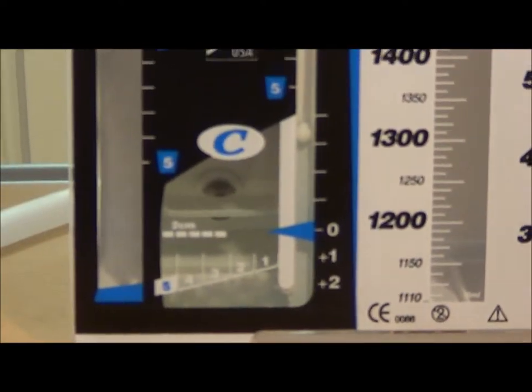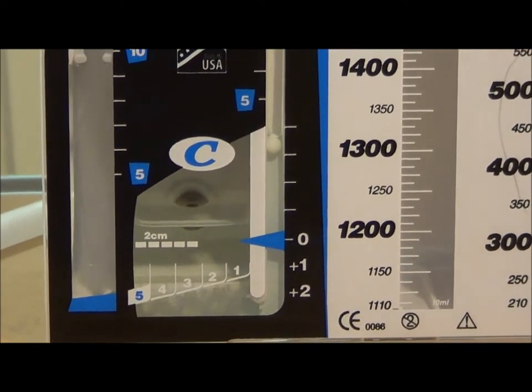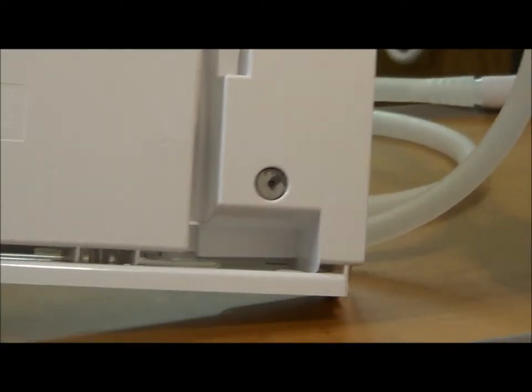If it is a little bit over, don't worry about it — we can fix that later. It doesn't need to be fixed to be hooked up to the patient. There is a gray port in the back that you would wipe to sterilize and use a blunt needle to draw out the extra fluid.